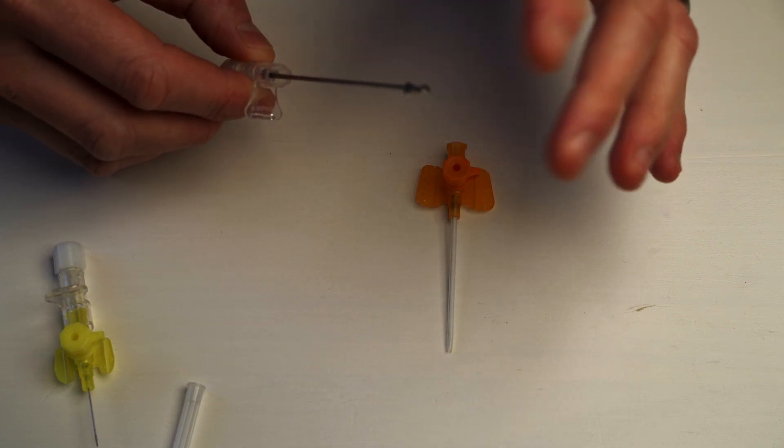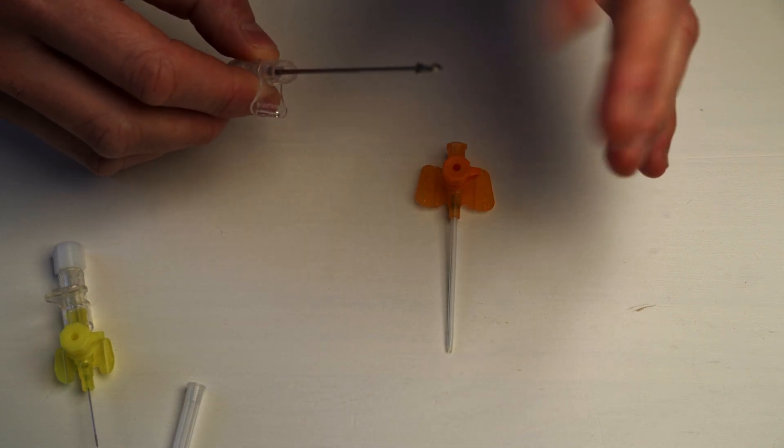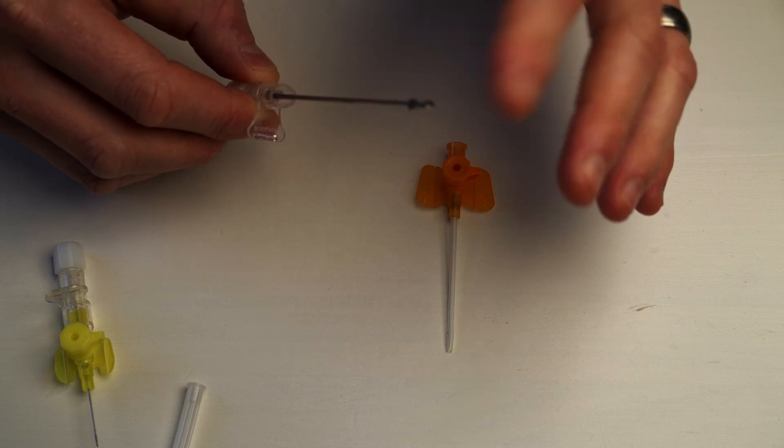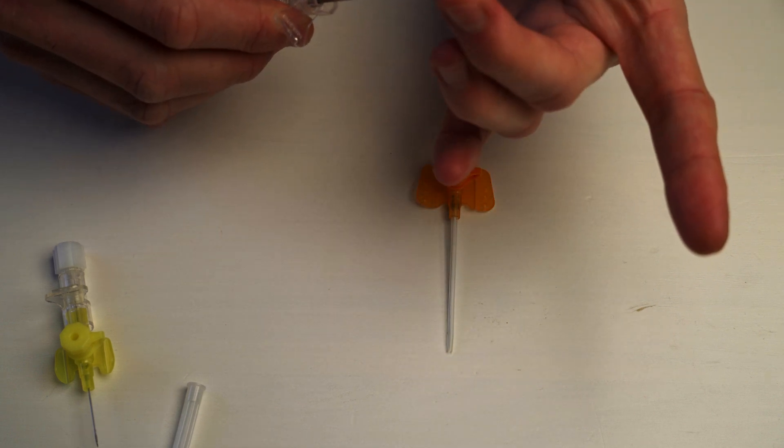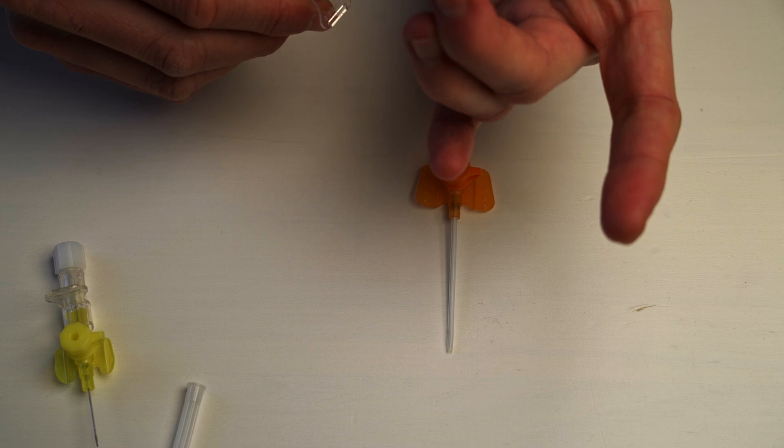So I can't prick myself, you see? I would be getting stabbed if I did this because it's very, very sharp. But I'm not. So just because I've played with these enough, I know how to open them up again. Don't do that.